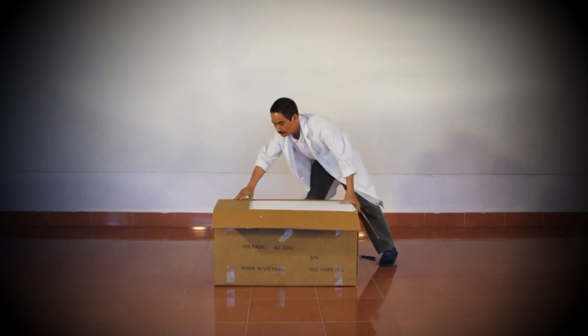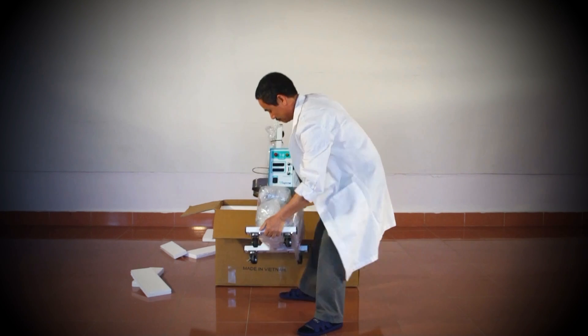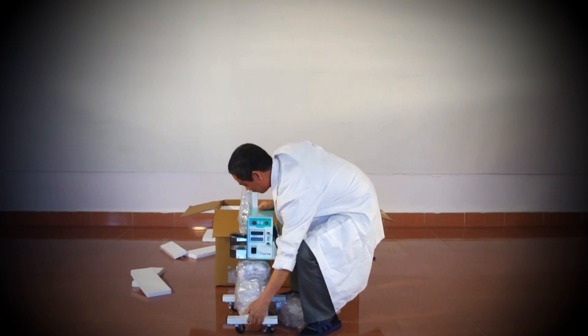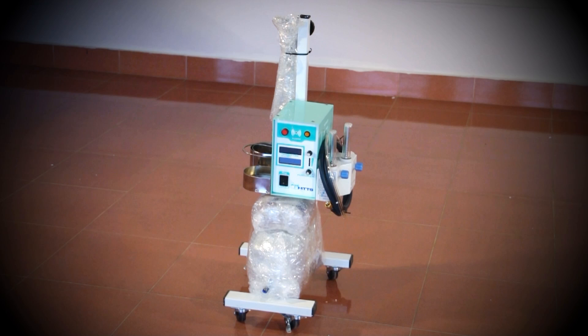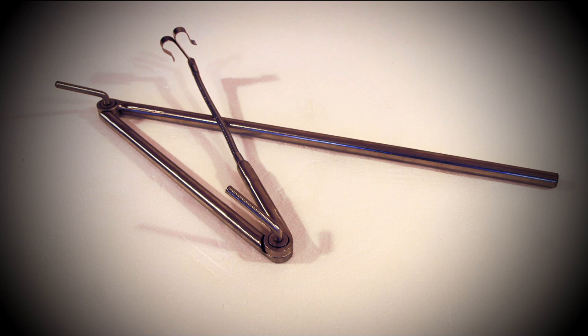First, open the box and remove all the components. You should have the CPAP main unit with control box and blender, which are packed together with the humidifier bottle, the PEEP bottle, and the CPAP arm.